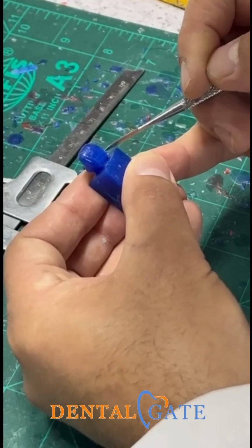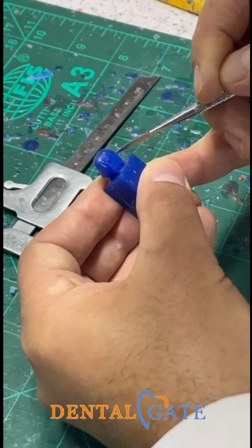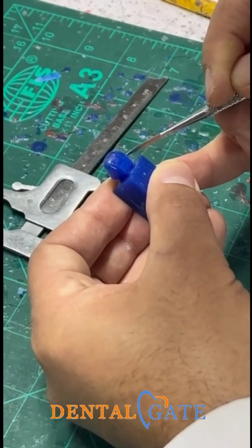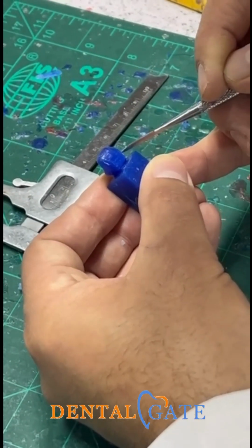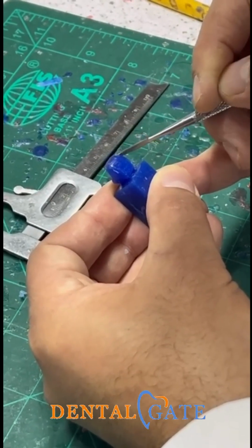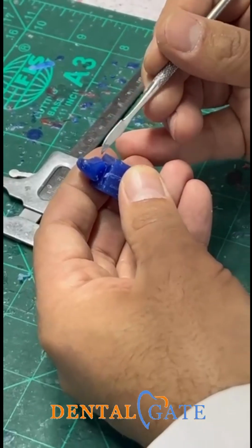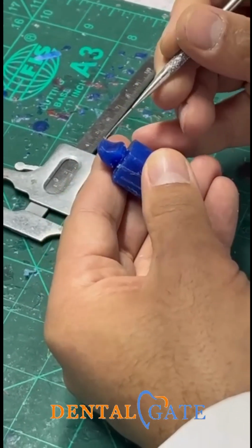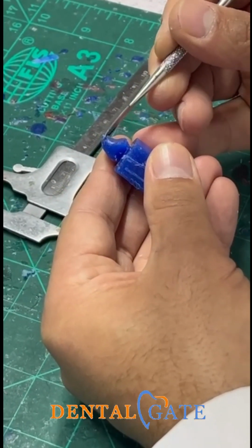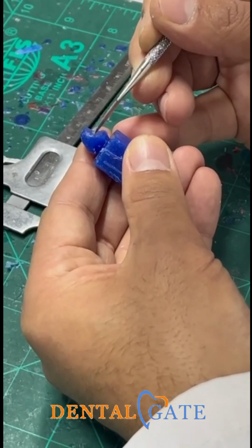We have slightly convex here. We had slightly convex beneath the contact areas. We had a roundation in the incisal third. So regarding the cingulum, I need this contour to make a cingulum. So I need this contour regarding what? Regarding the shape to make a marginal ridge.